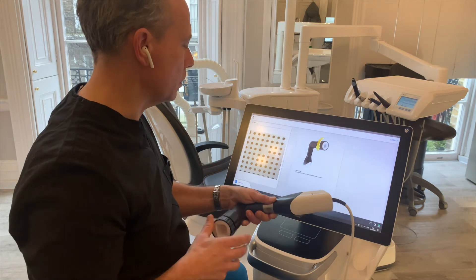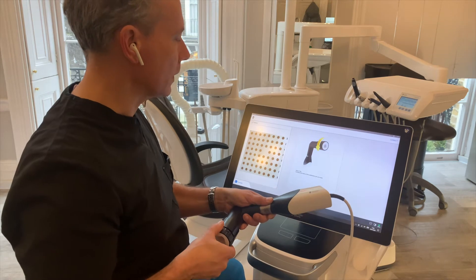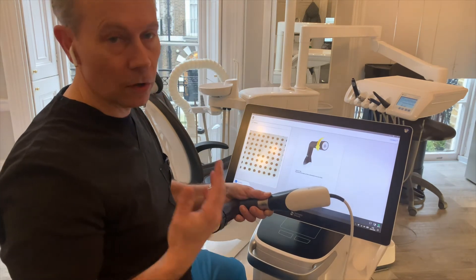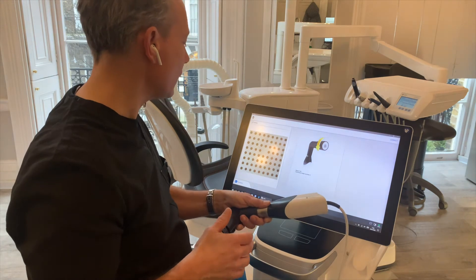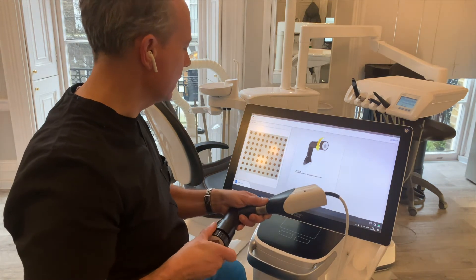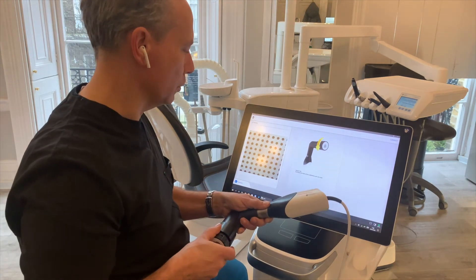It will just tell you: unscrew the base, capture image, unscrew the base. We keep doing this until we get right to the end of the 18 scans in the list. Every time it does this it captures the pattern in the test screen and then it lines everything up automatically.